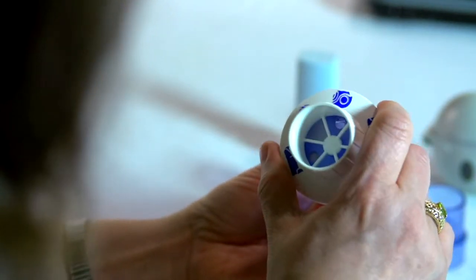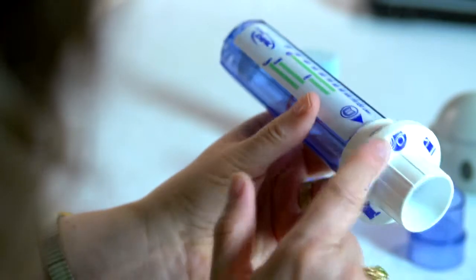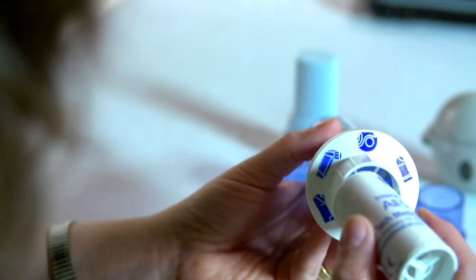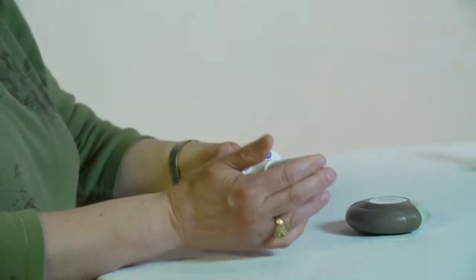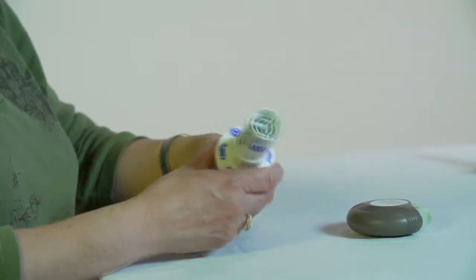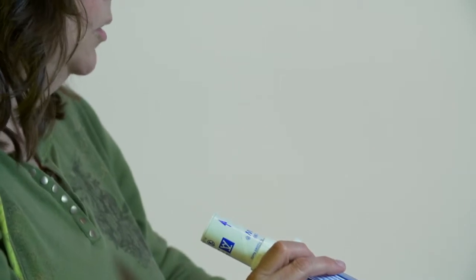However, this device is more expensive than the two-tone trainer. It is reusable, however, but after the initial expenditure for this device, the incremental cost for the disposable mouthpiece is very modest. Depending on your patient population, you may find this device cost effective.